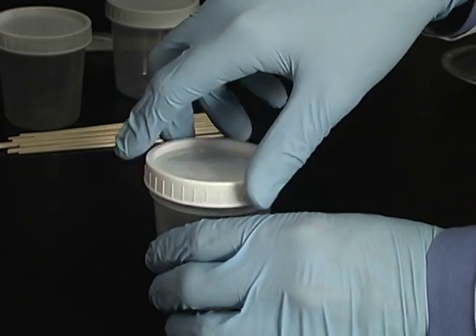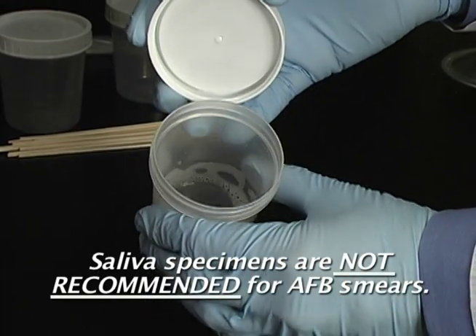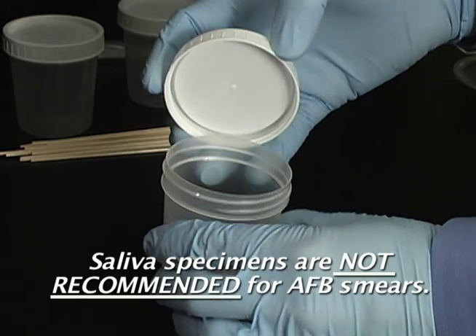However, if the specimen is mostly saliva, request an additional sample, as saliva specimens are not recommended for AFB smears.